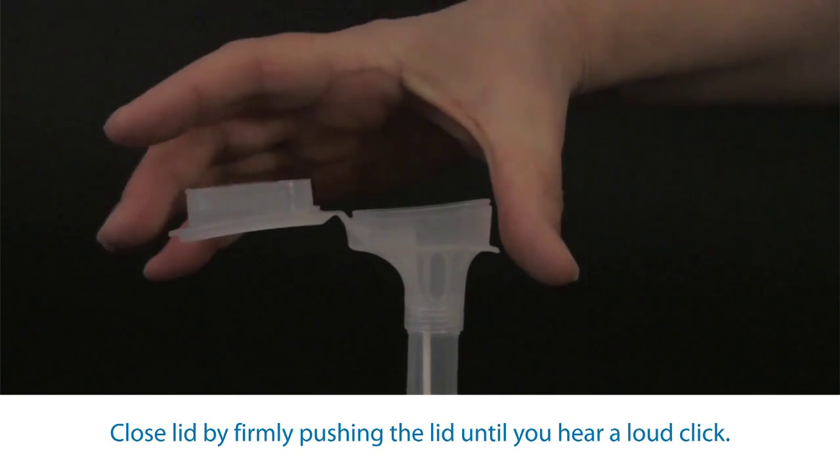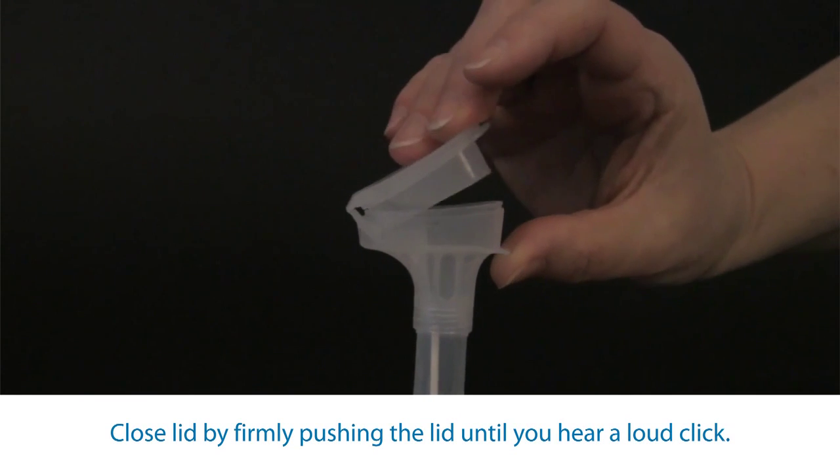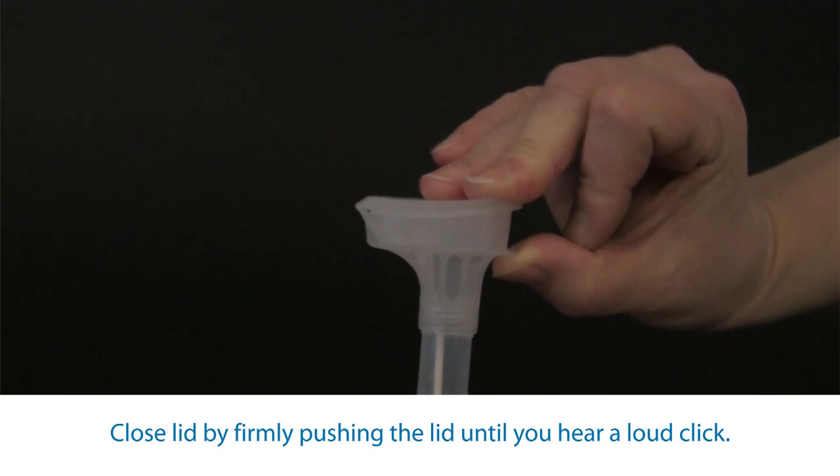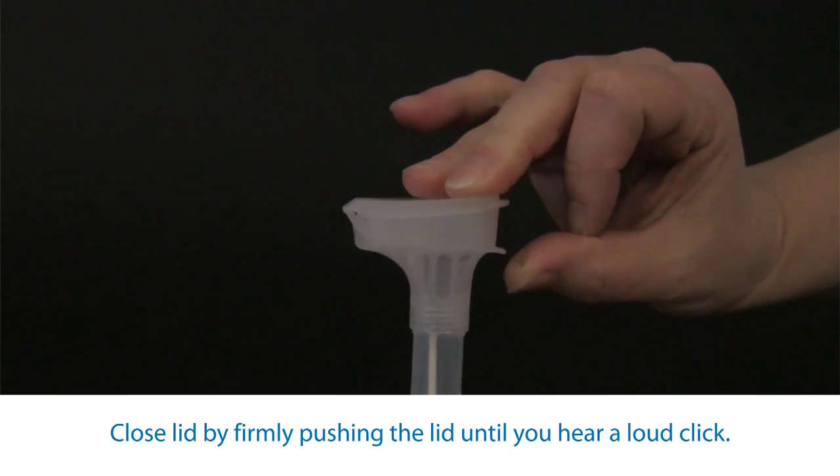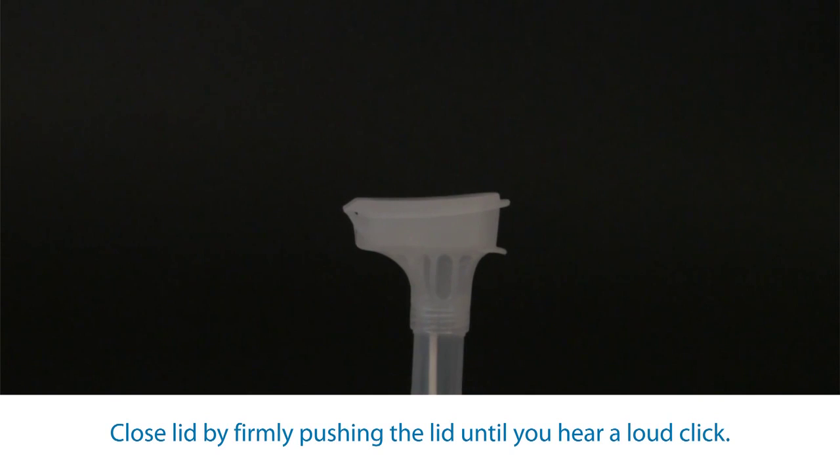Close the lid tightly by firmly pushing down until you hear a loud click. The liquid in the lid will be released into the tube to mix with the saliva.